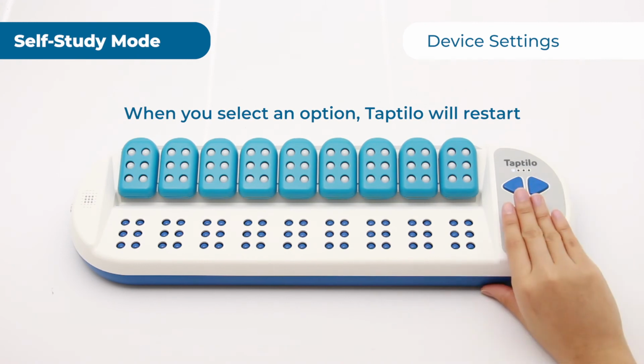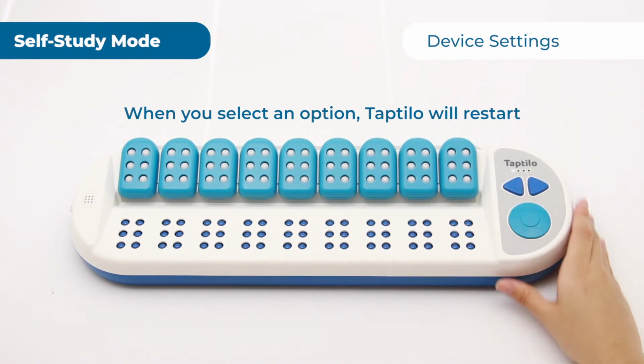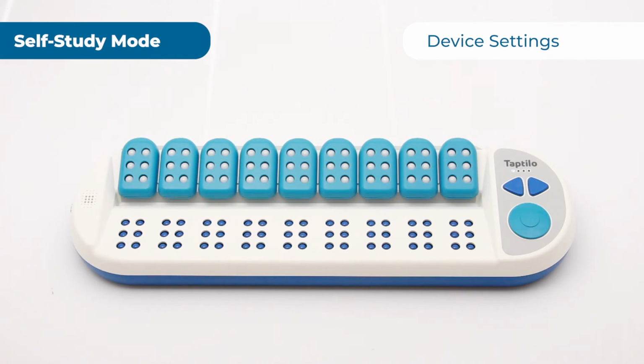When you select an option, Taptilo will restart to apply the new setting. Please wait until you hear the audio instructions, then you can start using it again. For teaching mode, pair with Taptilo application. For self-study mode, press the circle button.